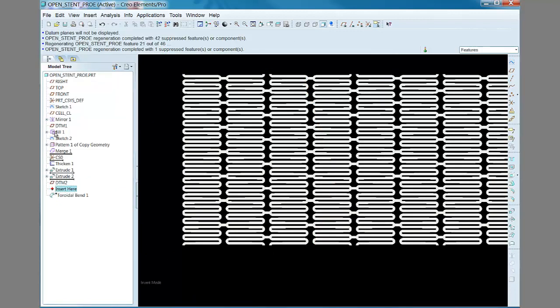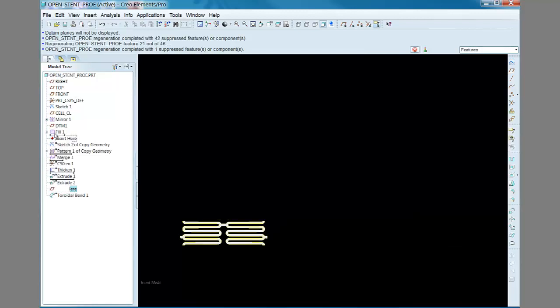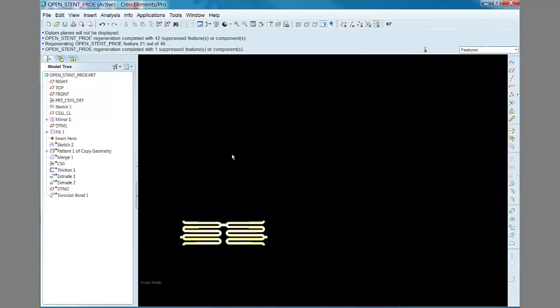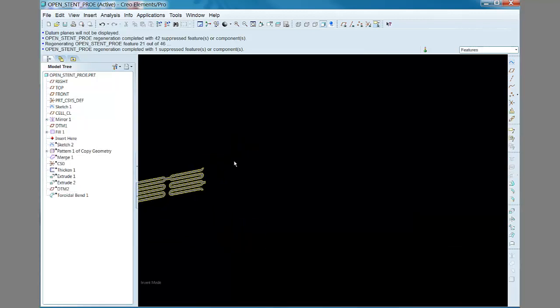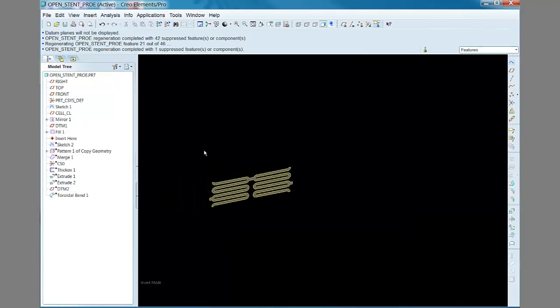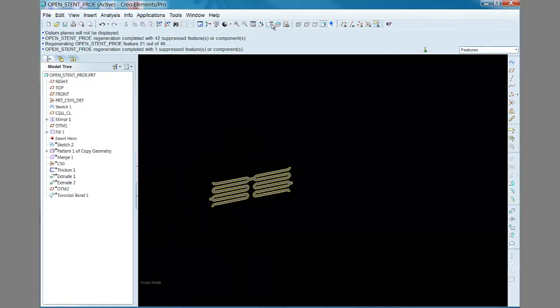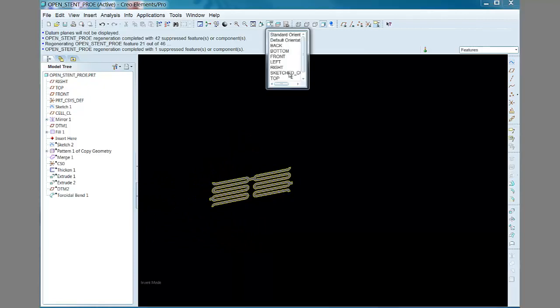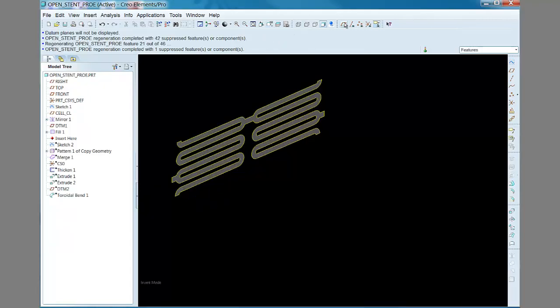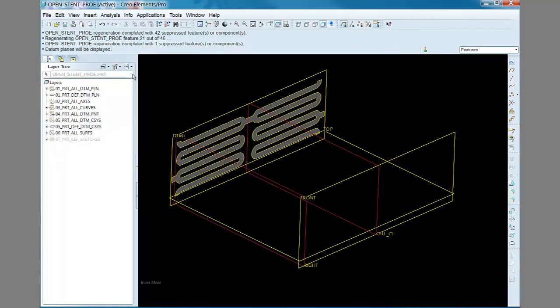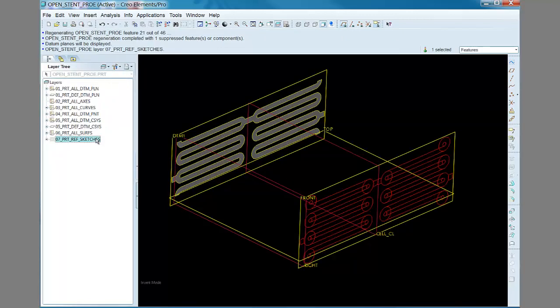Going back to the beginning, I created a flat surface by using the edges of a previously sketched datum curve that defined the unit cell geometry. The fill surface could have been created in one step with its own independent sketch. This would have made the model tree even simpler.